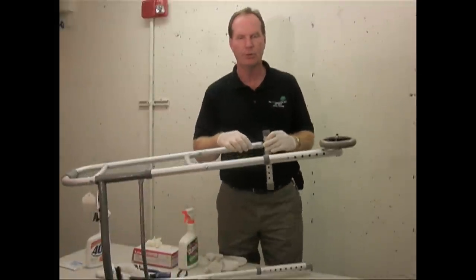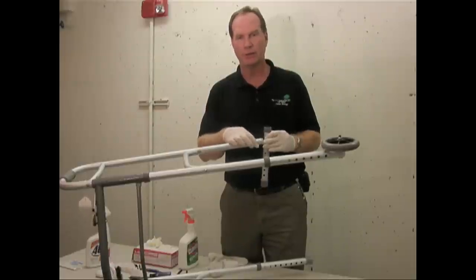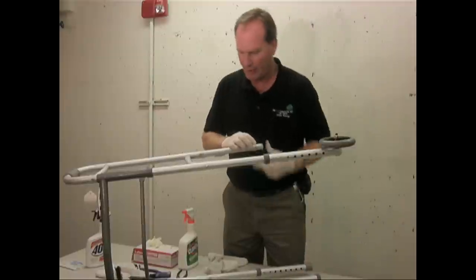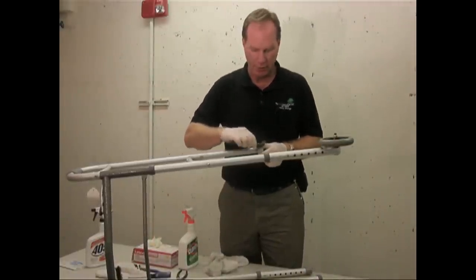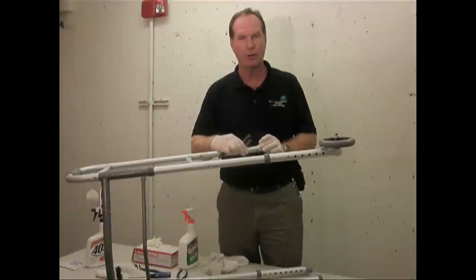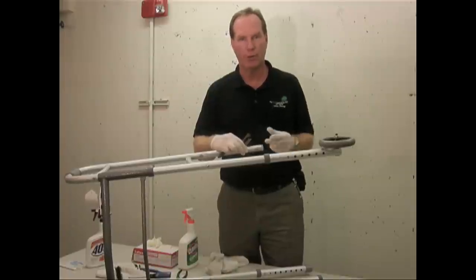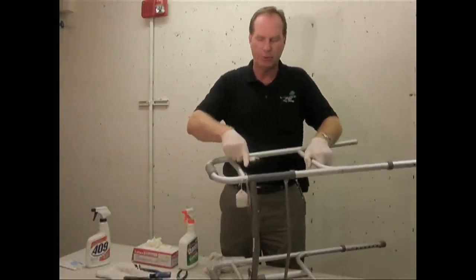While you're cleaning, be sure to pay special attention to these little locking knobs. They get corroded and dirty, and the person is going to be touching that every time they adjust the length. The best way to clean them is with a soft bristle wire brush, or you can get in there with a pair of diagonal or needle-nose pliers, pull it out, polish it on the wire wheel, and put it back in. Use the nylon brush for the little crevices and small pieces.